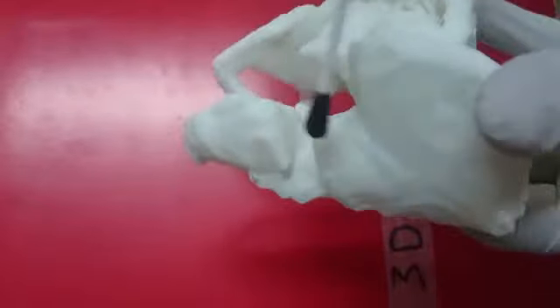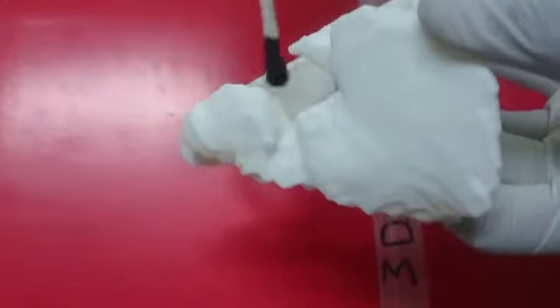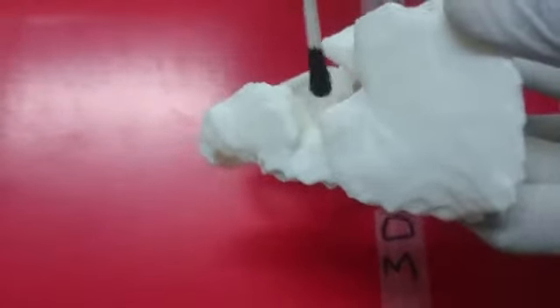He also had a fracture of the acetabulum. This is a posterior column of acetabulum fracture. This is the sciatic notch here. This is the ilium. This is the ischial tuberosity, and this is where the column fractured. Now, once that was done, another model was created to just highlight this posterior column fracture.